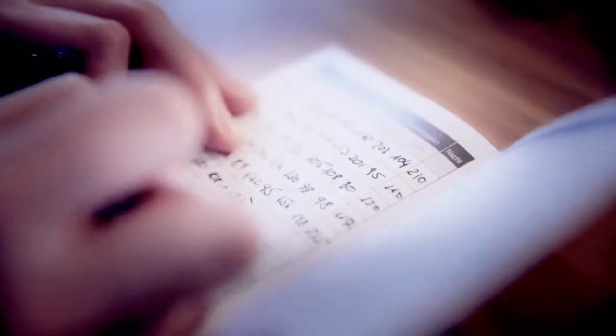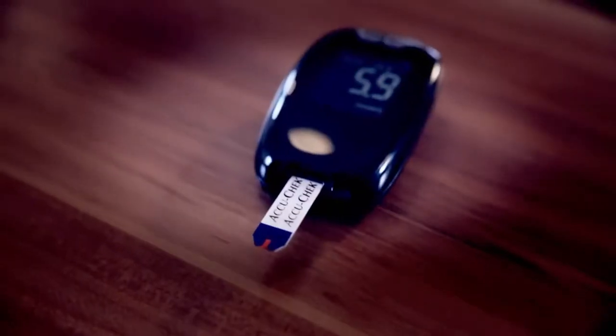It works like this. Within seconds, the system analyzes blood samples and then gives a reading of the blood sugar level.